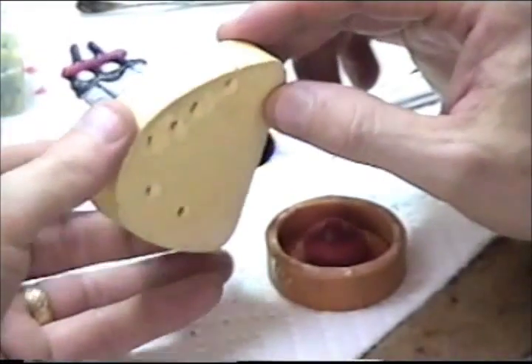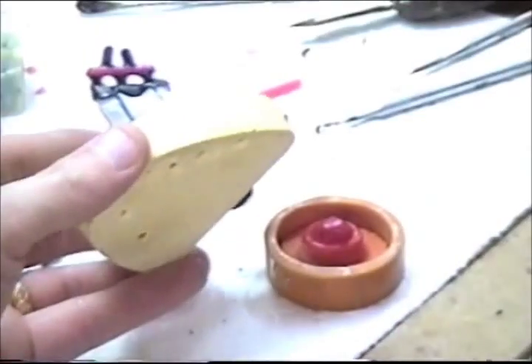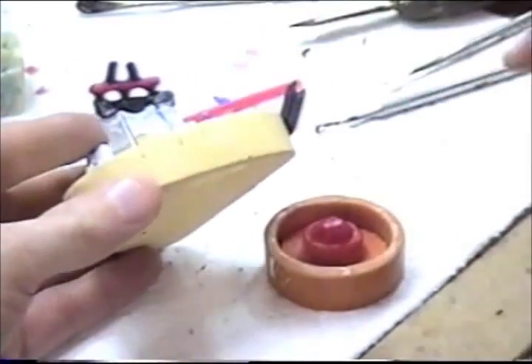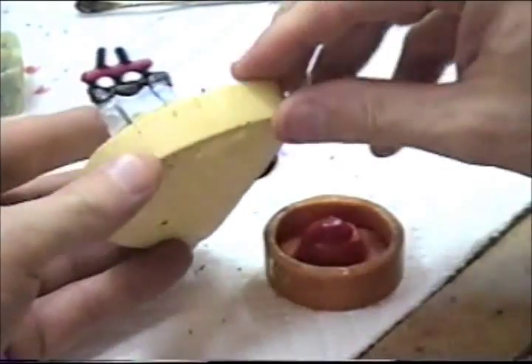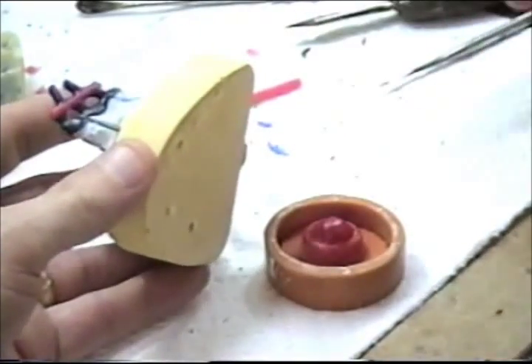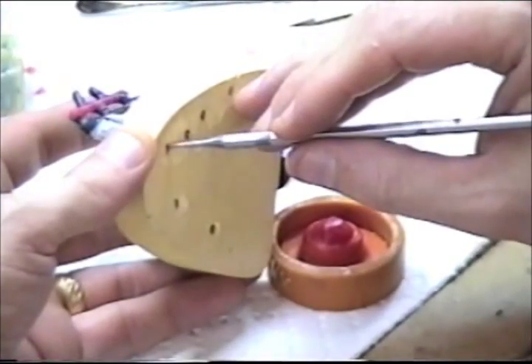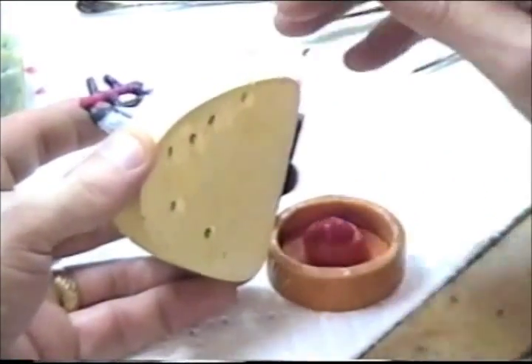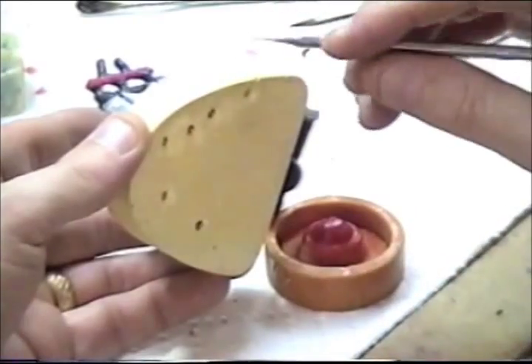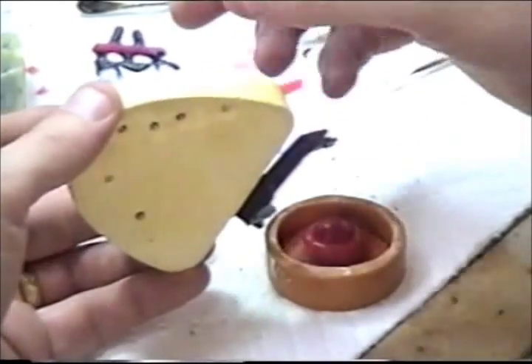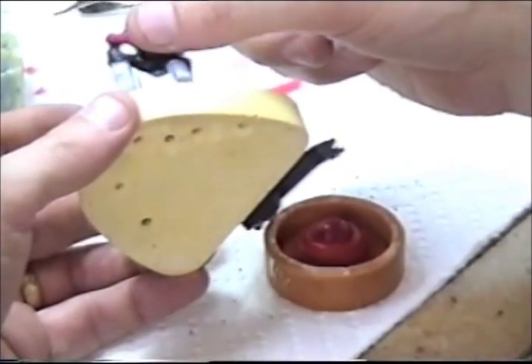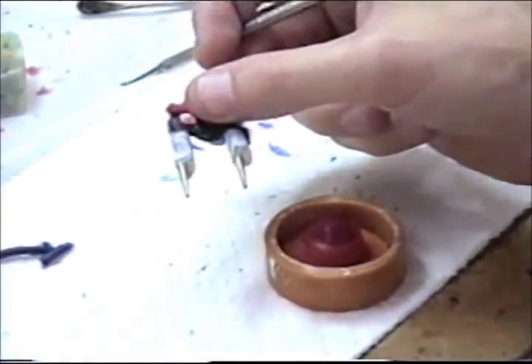Now what I'm going to do is pretty critical as well, and that is to push the dies up, just lightly tapping in the bottom here. Pull the dies out of your model.